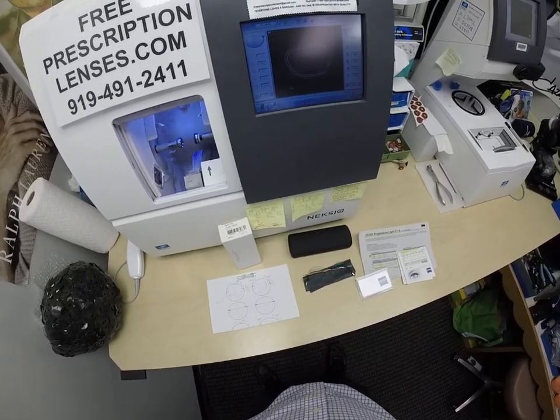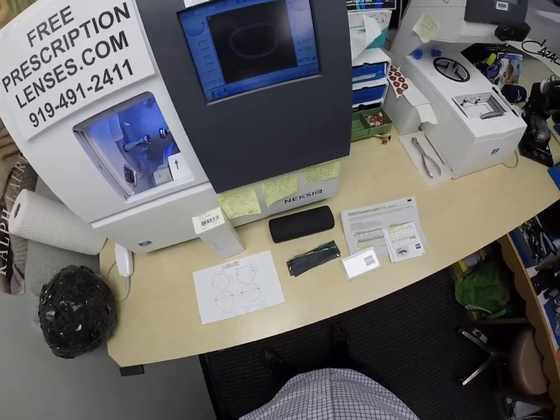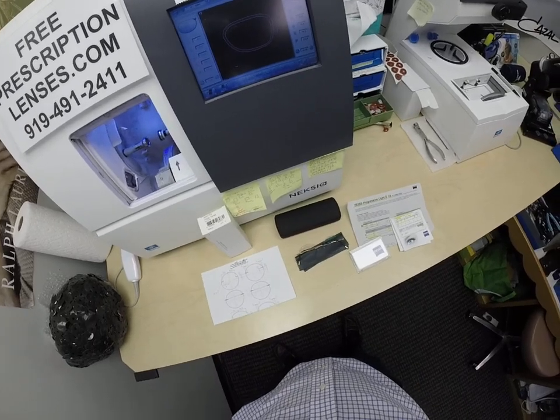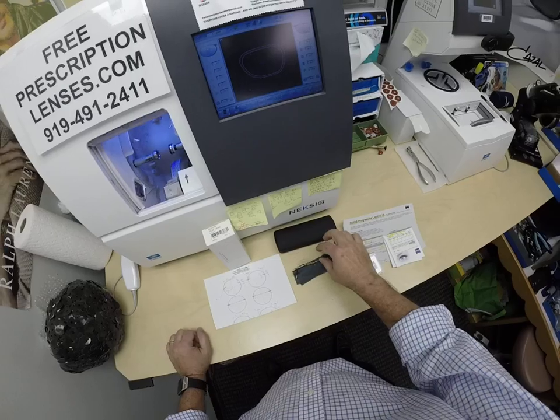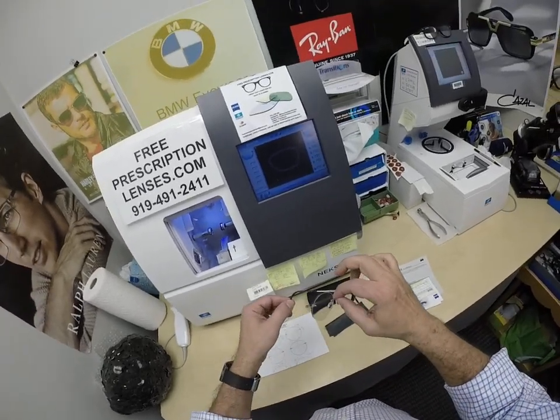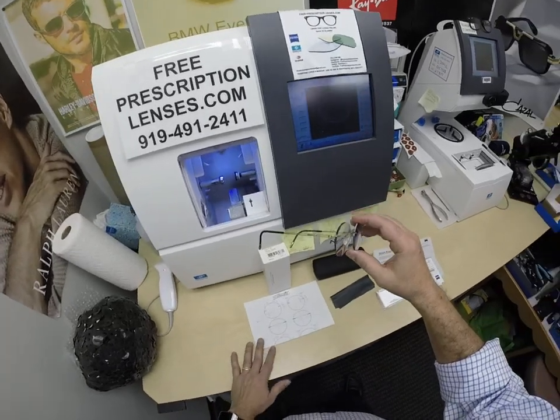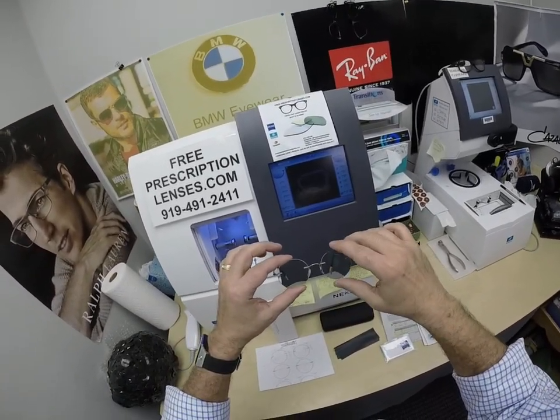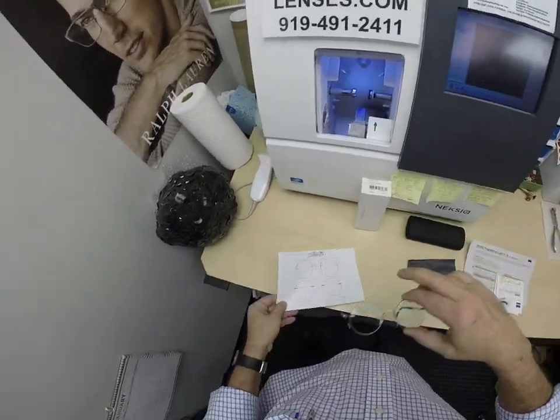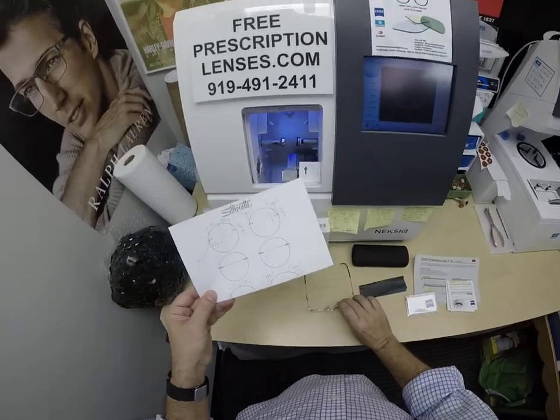The last name is Webb, but in all the email correspondence he goes by the name Spider. Spider wanted a silhouette frame that we do not yet have on the website. They wanted a shape as close to the Steve Jobs look as they could get, and that is shape 4535 from Silhouette. I pulled up the drill chart and was able to do it.